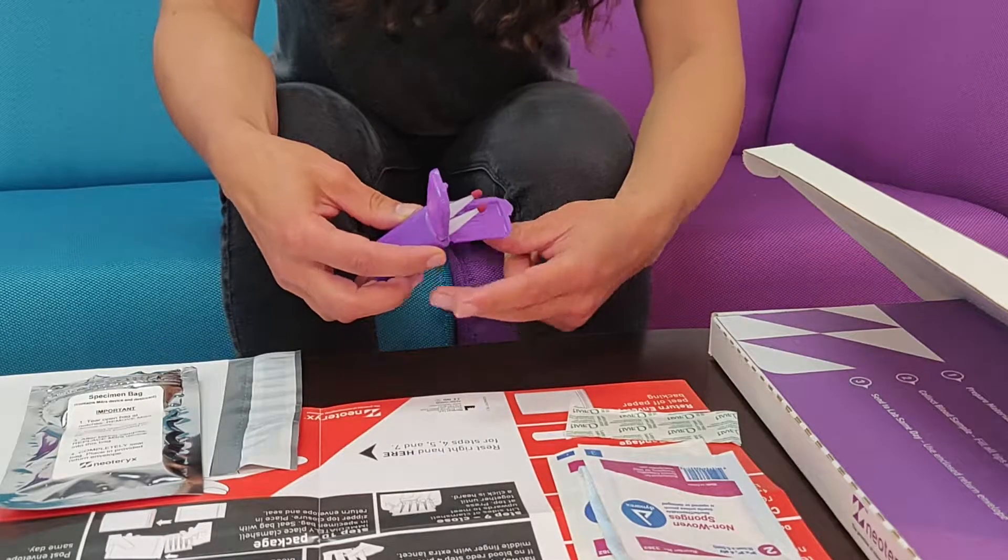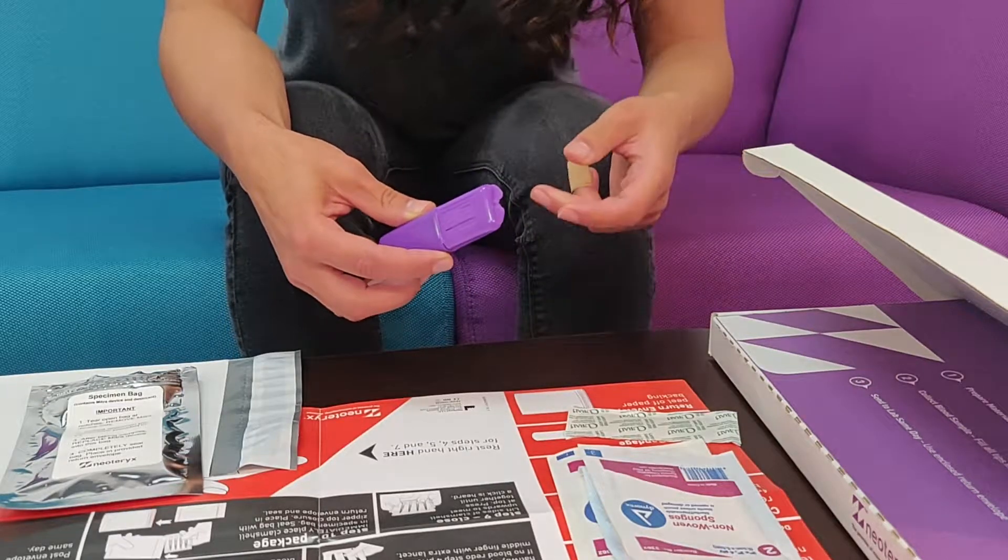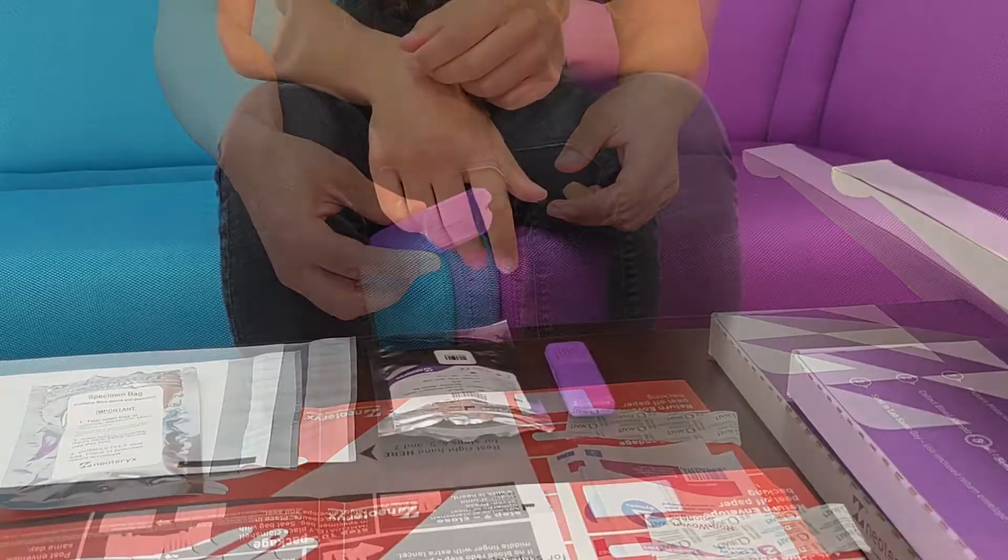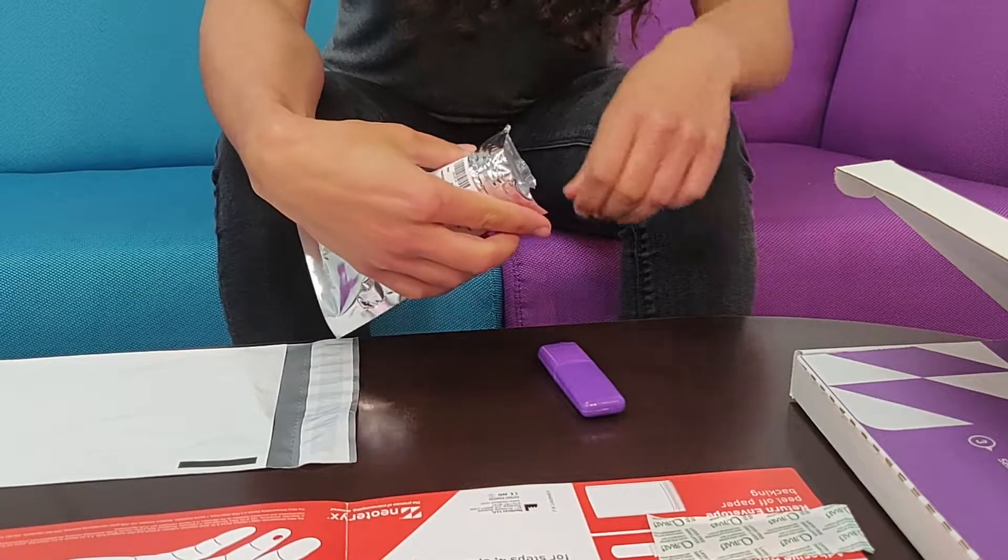With our cartridge format, samples are easy to collect at home or in the field, and they're easy to ship to a lab for analysis.